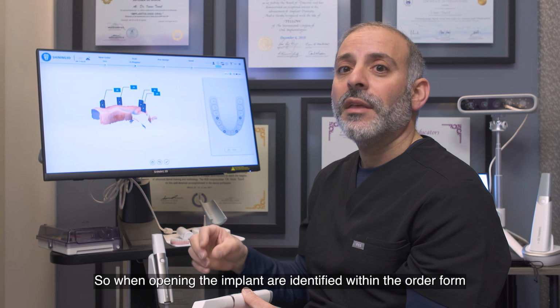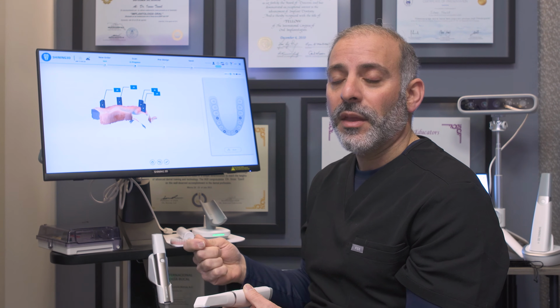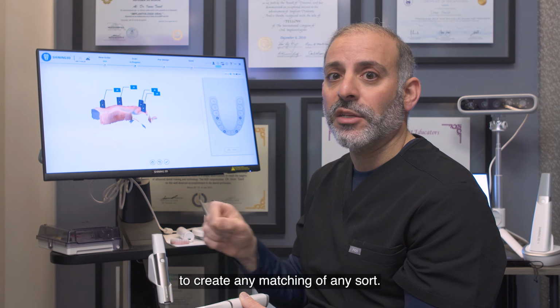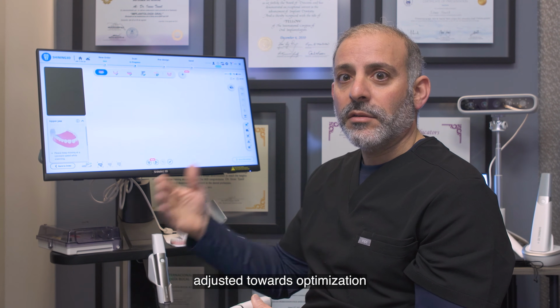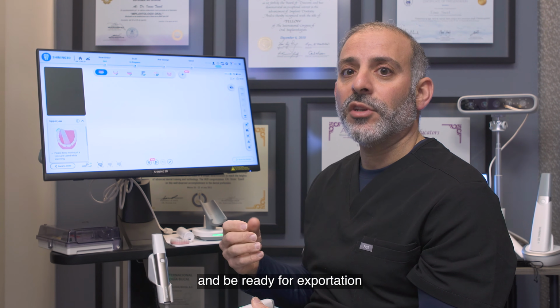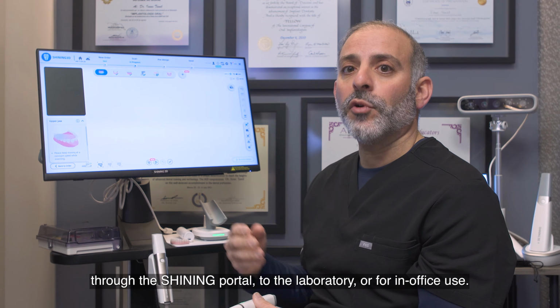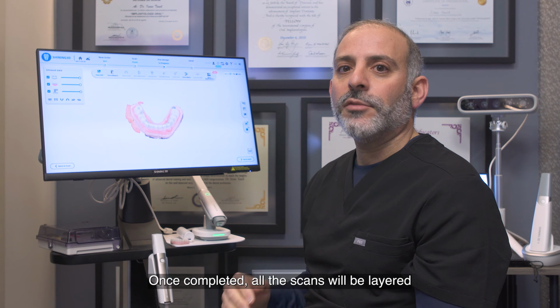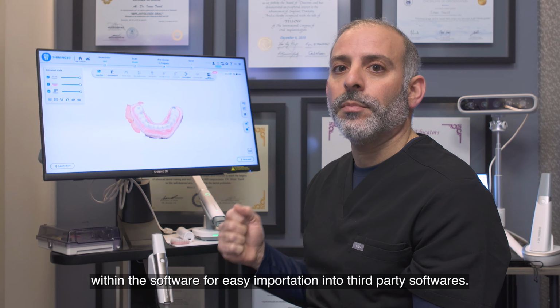So when opening, the implants are identified within the order form, and there is no need for the lab technician to create any matching of any sort. The software can then be adjusted towards optimization and be ready for exportation through the Shining portal to the laboratory or for in-office use. Once completed, all the scans will be layered within the software for easy importation into third-party softwares.